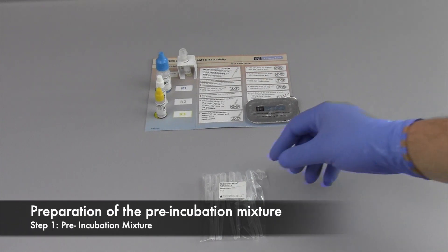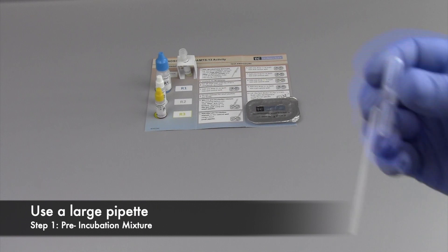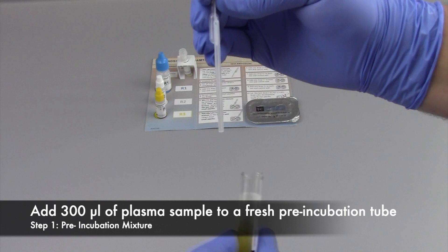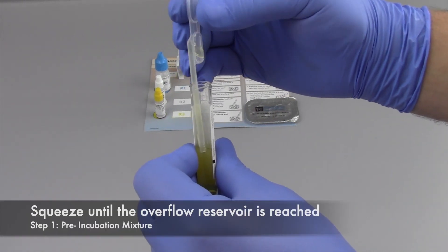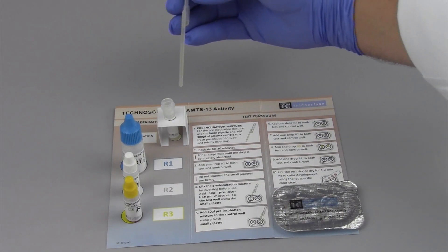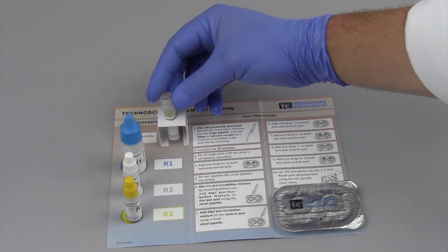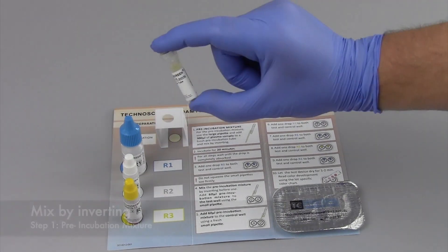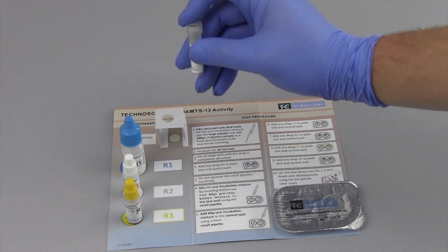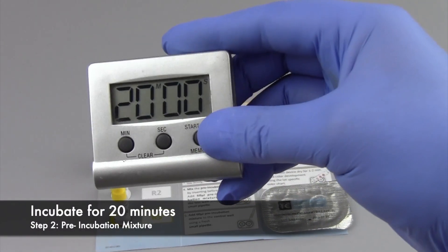The first step is preparing the pre-incubation mixture. Use a large pipette and add 300 microliters of plasma samples to a fresh pre-incubation tube. Squeeze until the overflow reservoir is reached. Mix properly by inverting, then incubate the sample for 20 minutes.